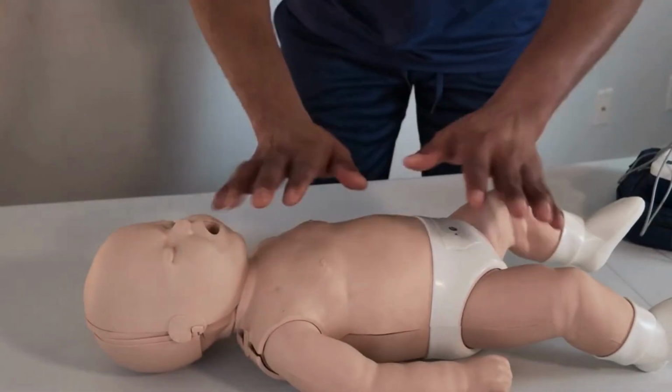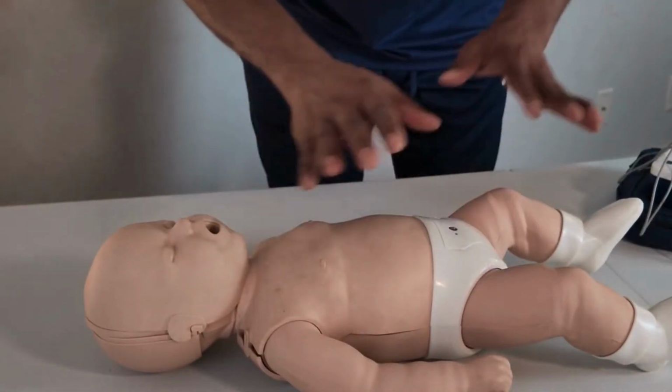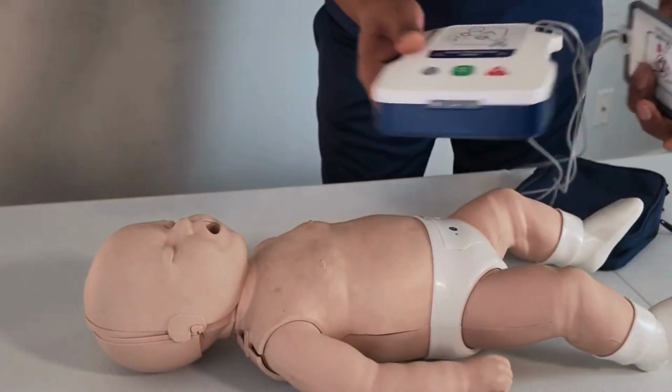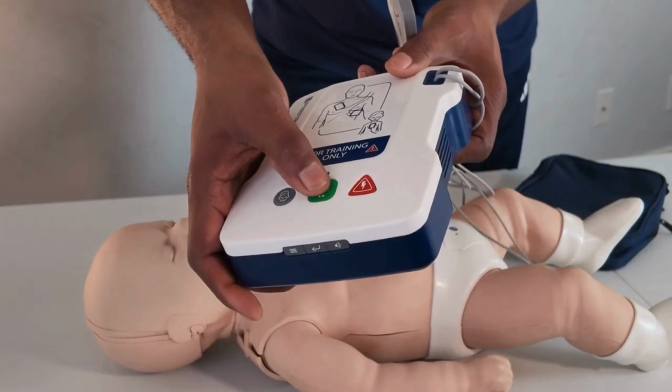So now we have a child here. So let's follow the prompt and try to help a child. The same process, let me put it on.